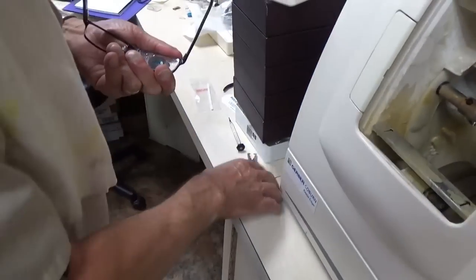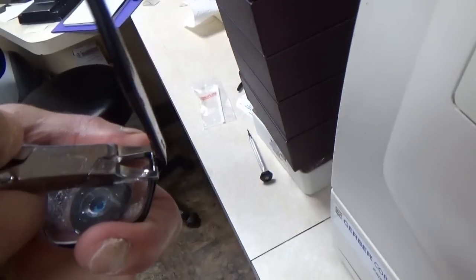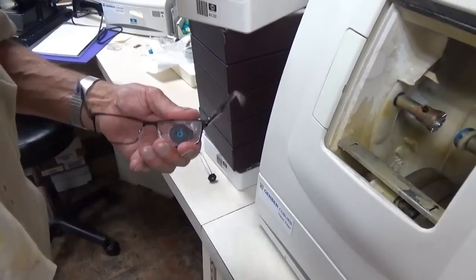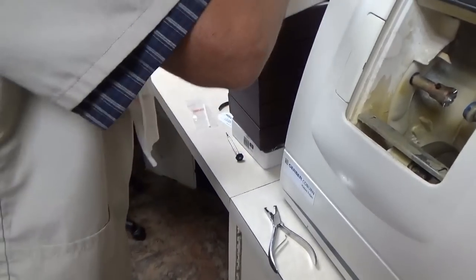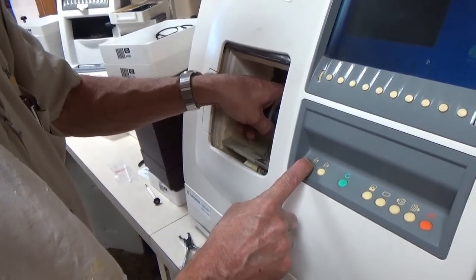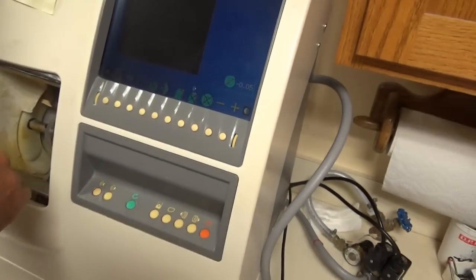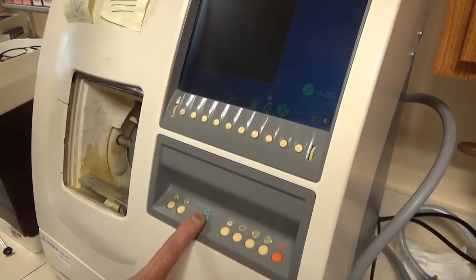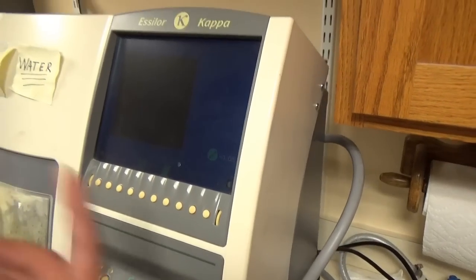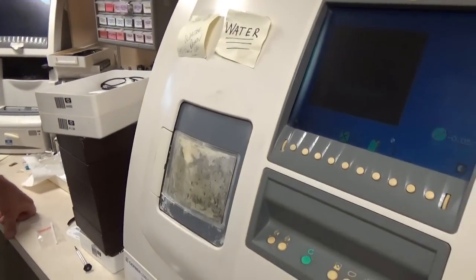I'll get it all lined up and do this again — that's pretty much perfect. You can see right there where it separates; the screw just pinches it together. If it's too loose, the lens can fall out; if it's too tight, in some situations you can actually damage the lens. Now I'll change it to the left eye — hit that twice: once will retouch it, twice will take. Now it's ready. We're going to start that whole process over. Sometimes on the left lens you have to take it down again.